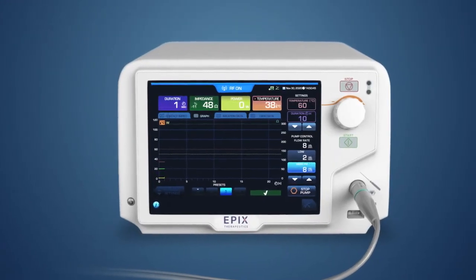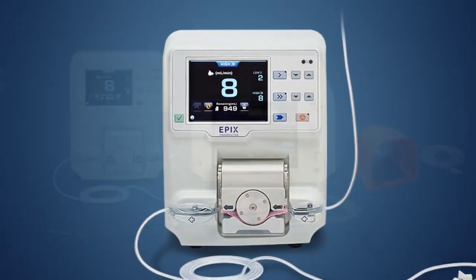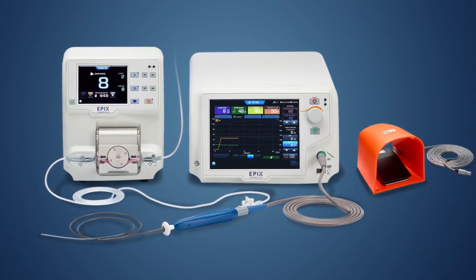Experience the Diamond Temp ablation system with Real Temp. The next era in RF ablation.